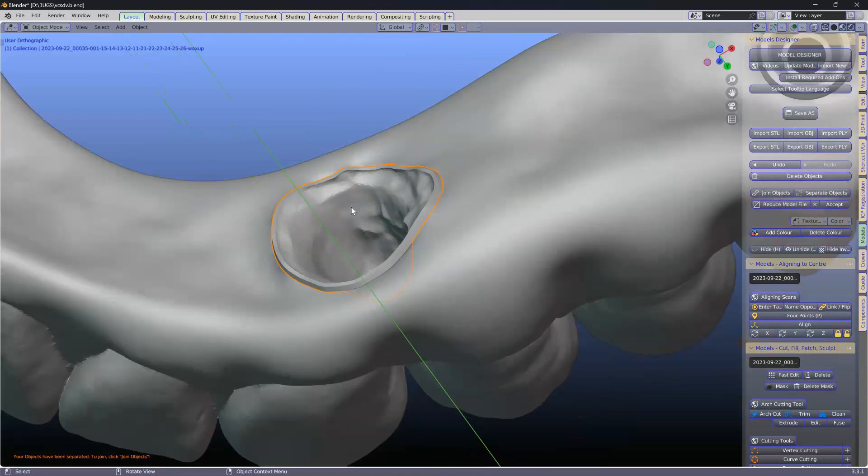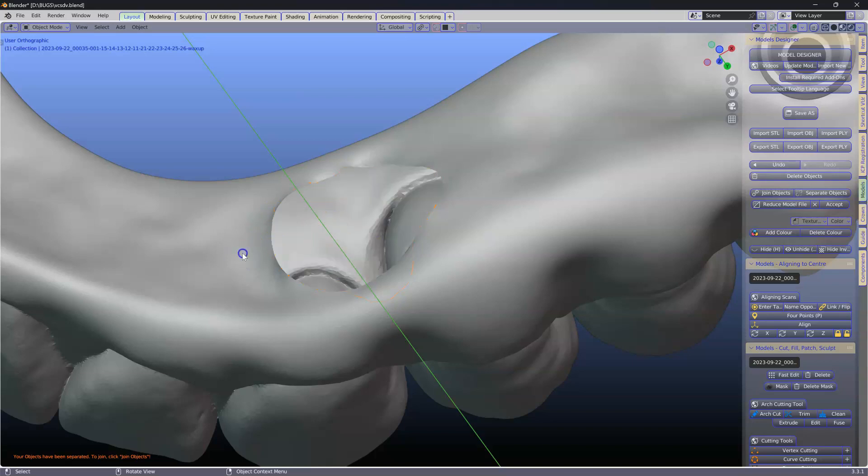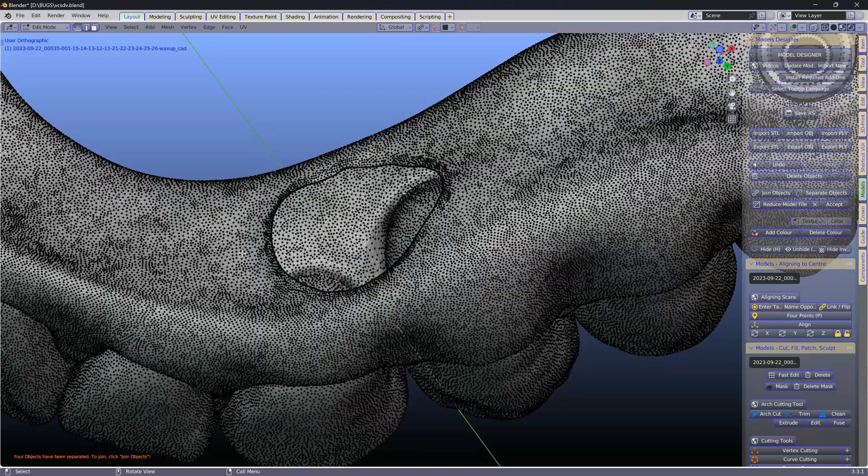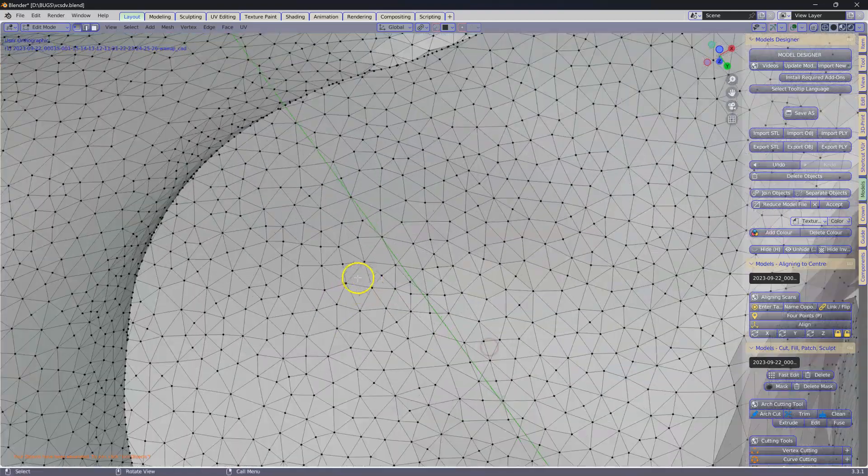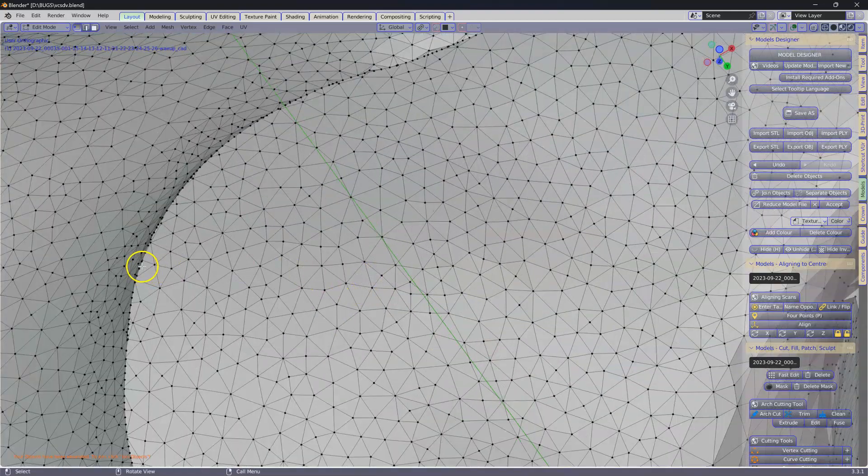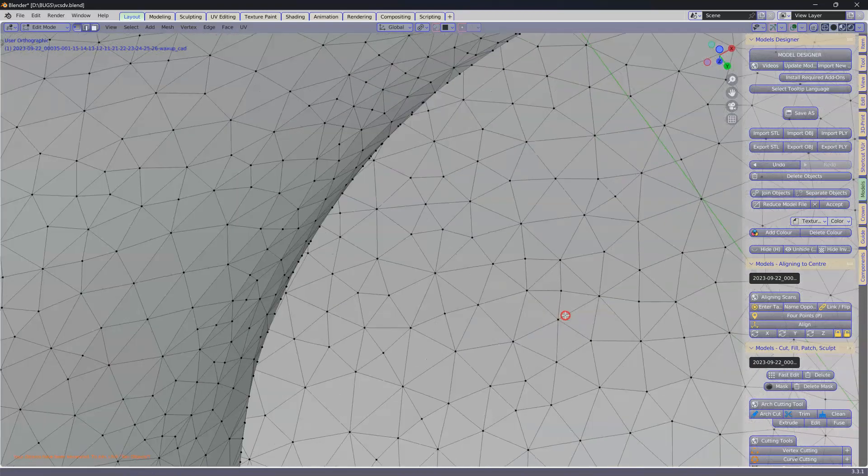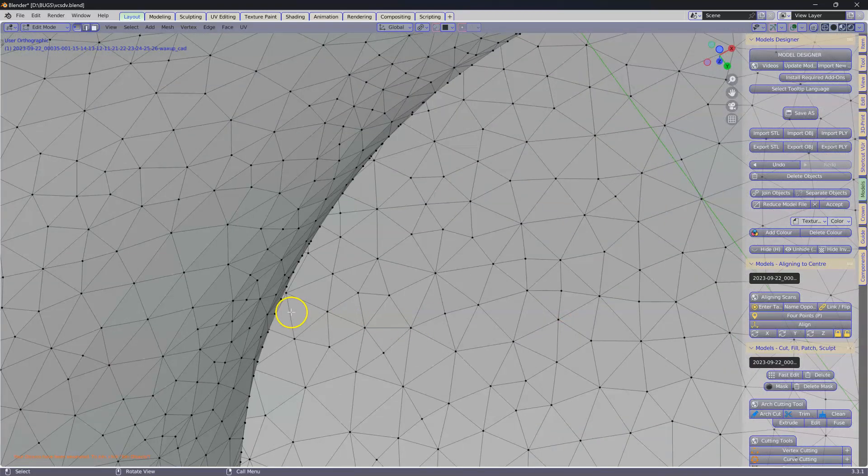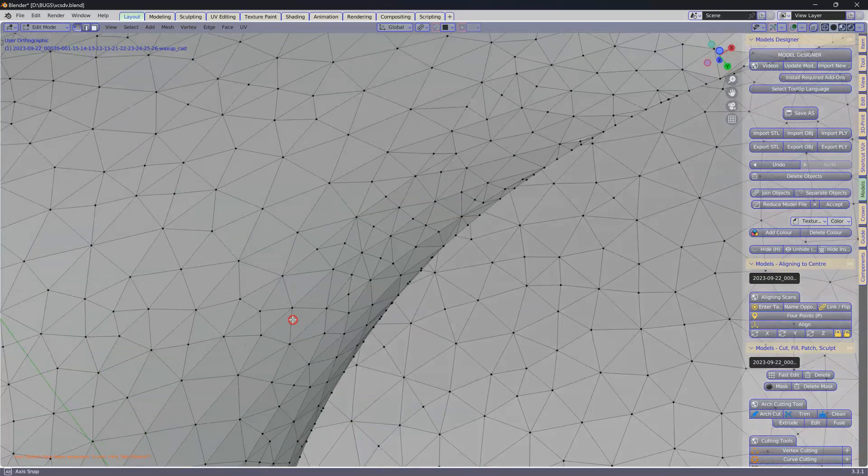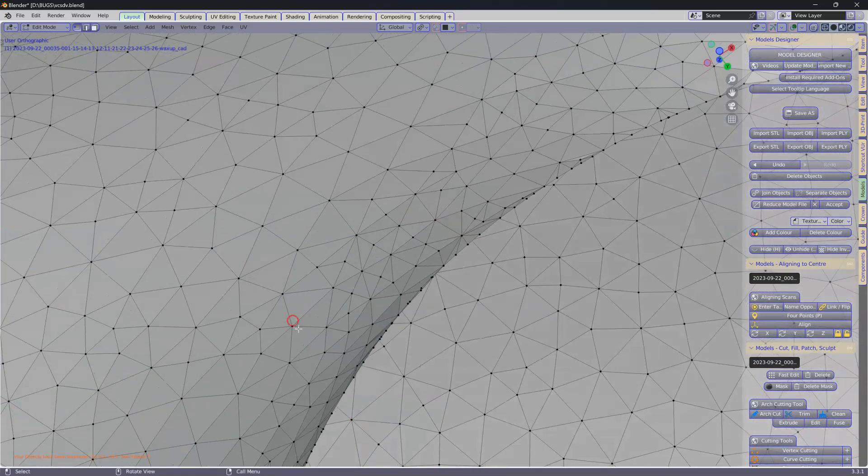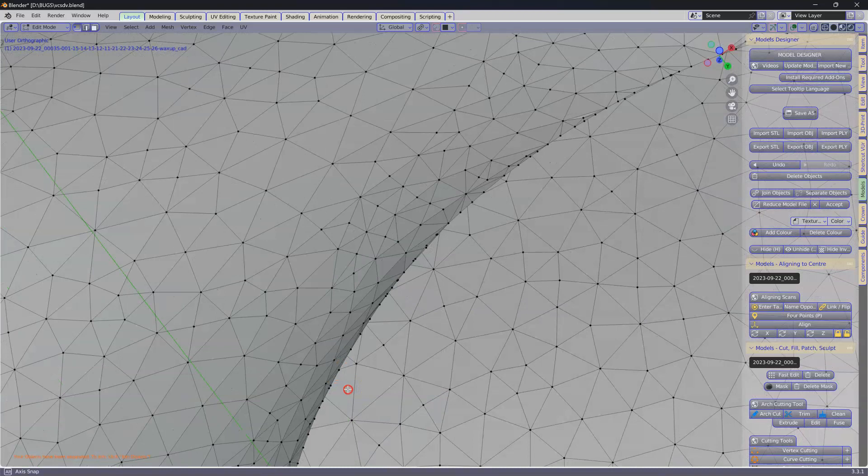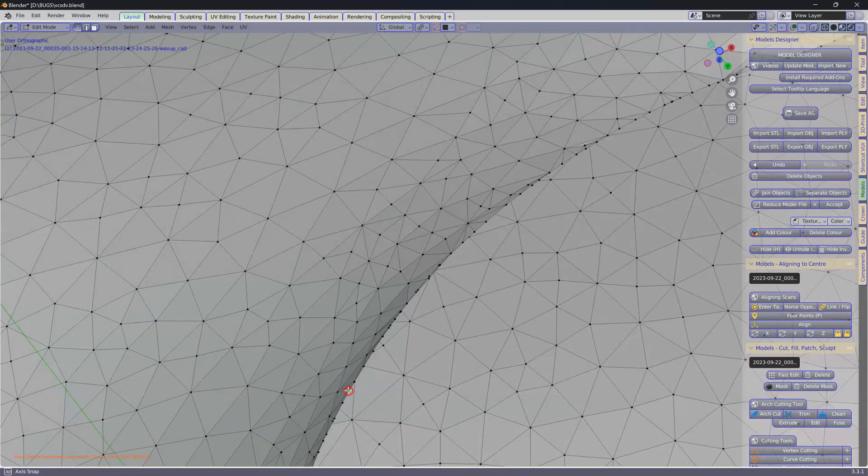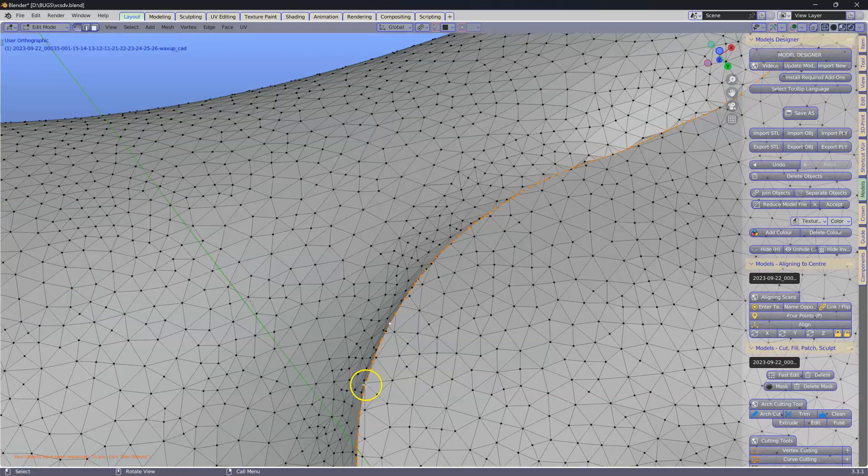I'll just briefly show you what I will do to unify the two. I'll hide this one and go tab. I'm going to zoom in. I'm going to Alt-Left-Click on one of these edges here. Find yourself tilted so that you can actually get a correct edge. Alt-Left-Click.